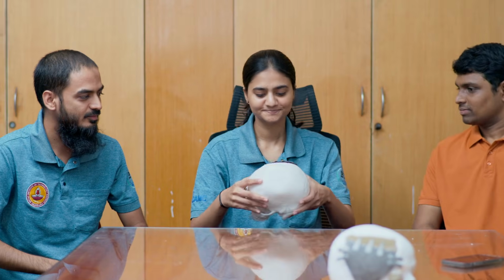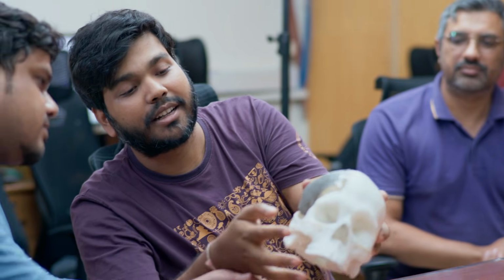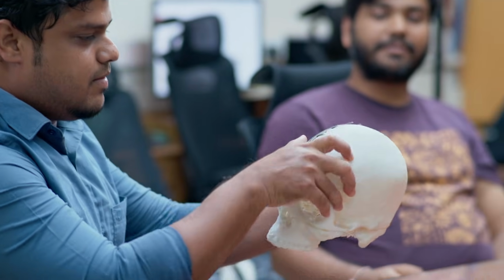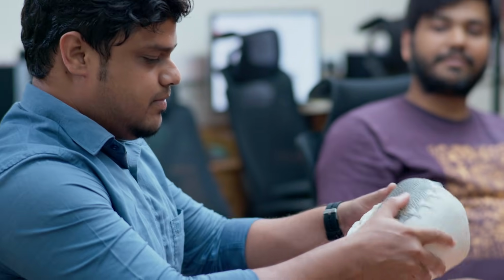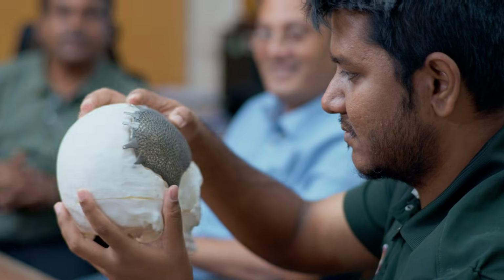In IIT Madras, a new generation of innovation is taking place to elevate the Indian healthcare to next level. Young engineers and researchers at IIT Madras are reimagining how the body and technology can work together. Here, we are not simply replacing what is lost, we are designing what the body needs next. This is a new approach to cranial reconstruction.